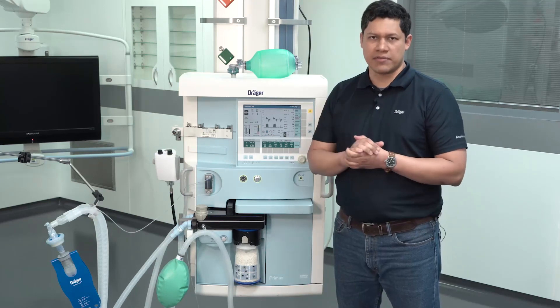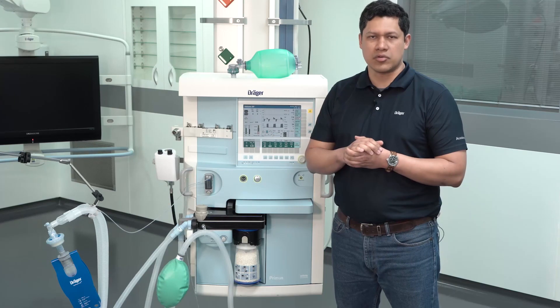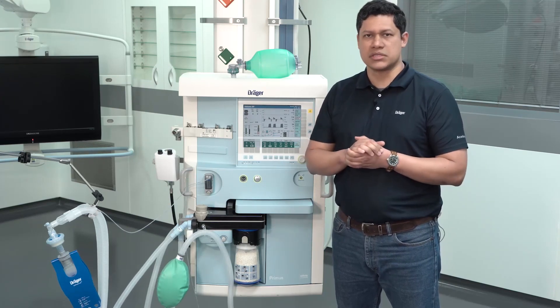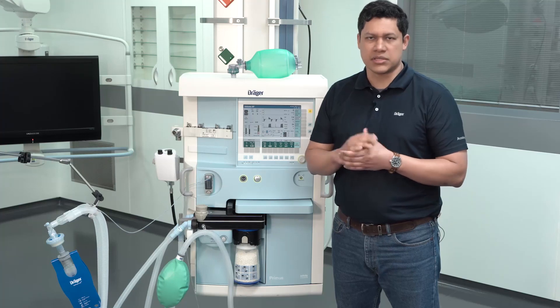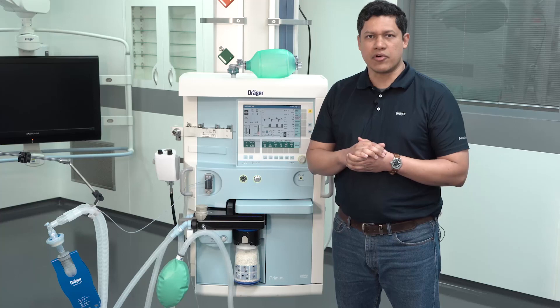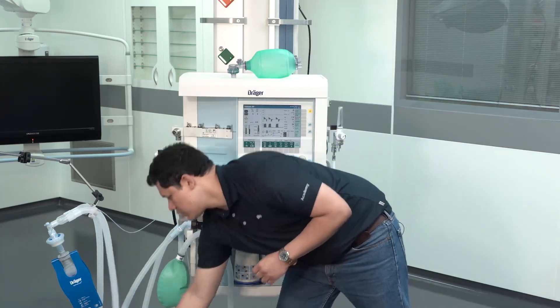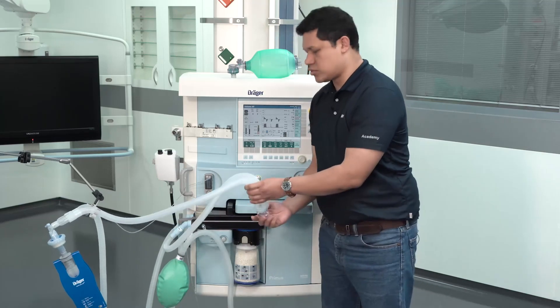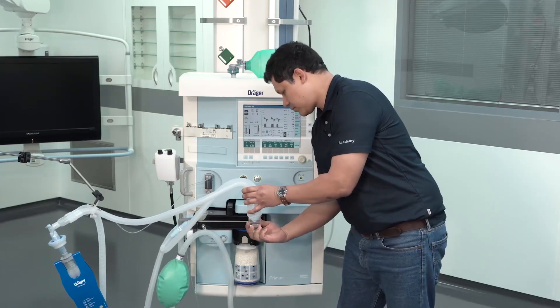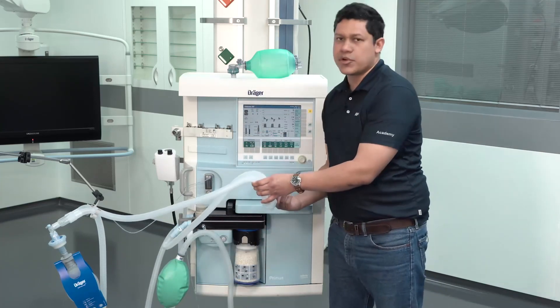Keep in mind that you have to regularly check for condensed water in the breathing hose system. The recommendation is to use the breathing hose system with water traps, because in that case you can safely drain the water and avoid leakages on the patient side. To do so, just turn the water trap and drain it, then put it back in place.